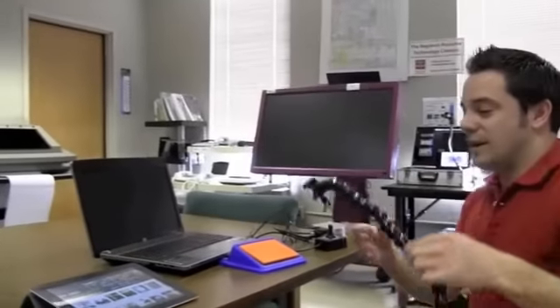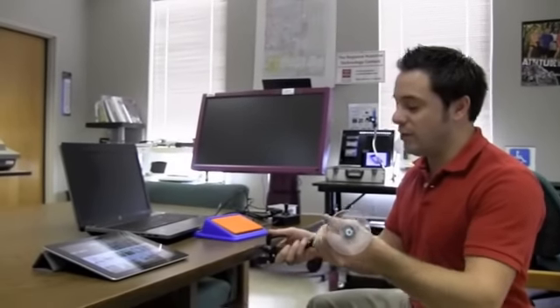The last thing about this device is it comes with these Link Locks arms, and you can actually use what they call dual lock Velcro and attach the iPad to this and have it clamped onto a wheelchair.